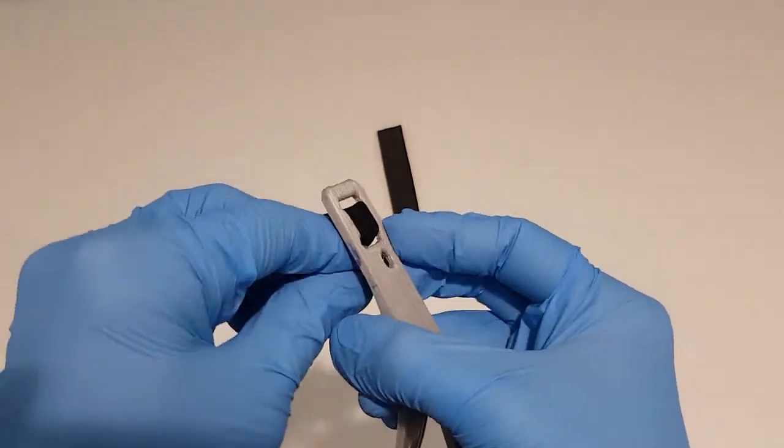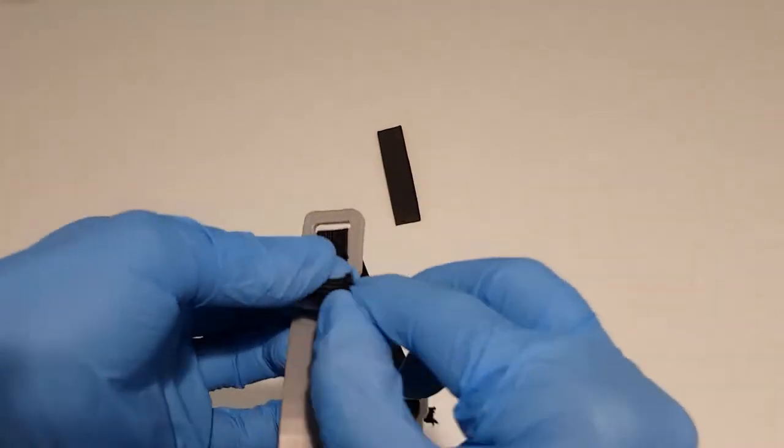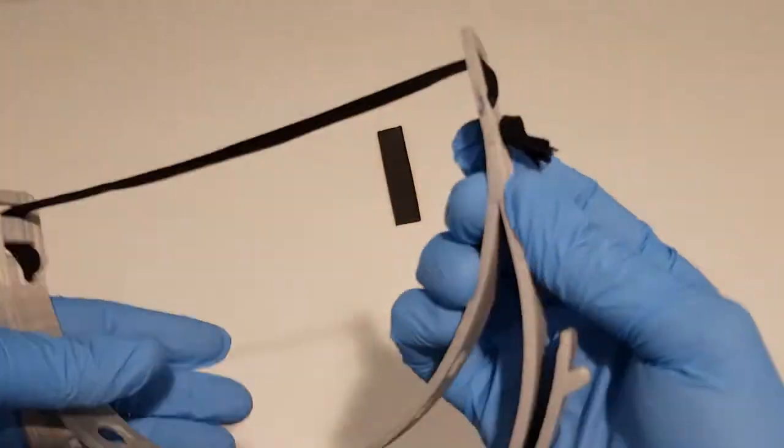Duplicate the strap threading process in reverse on the alternate side. Finally, tie a single knot on the unknotted side of the elastic strap and adjust this so that the tension on the strap is suitable for the wearer.